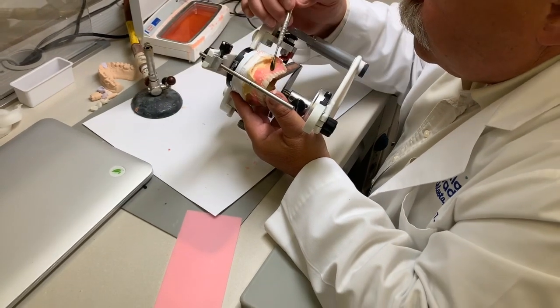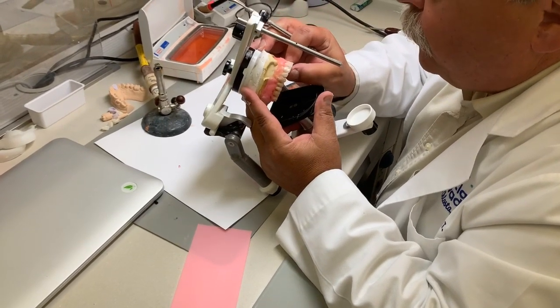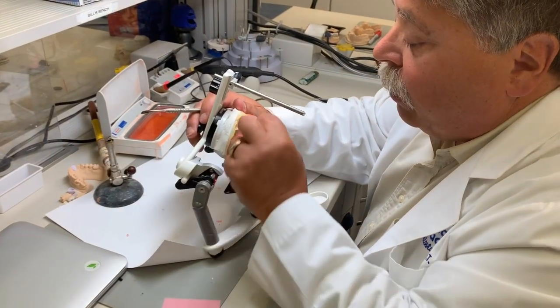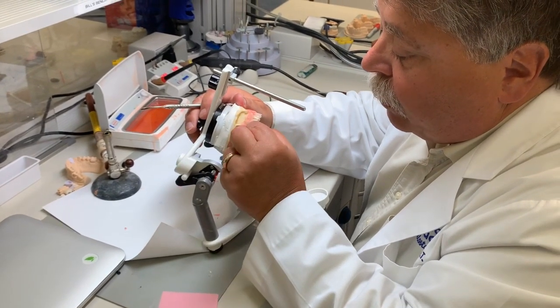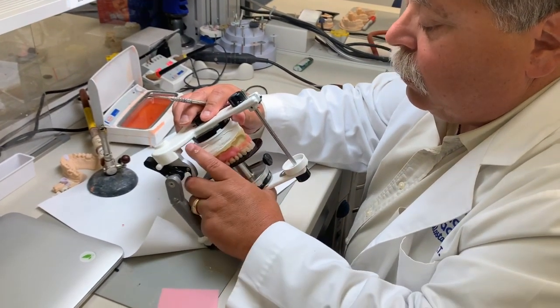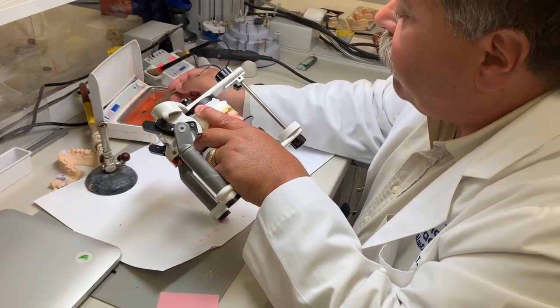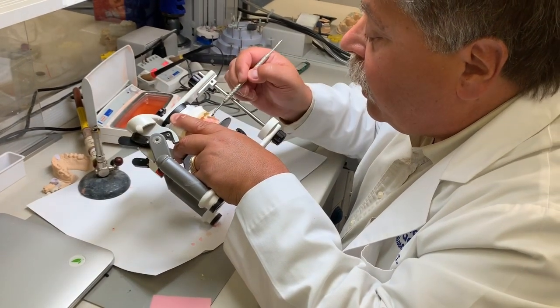Like you said before, it's very important to pay attention to the little details. The little details. Because once they're in the acrylic, you can't just change them around. At this point, it's in soft wax, so we can easily just pull out one tooth and make a change, rotate it a little bit, turn it, put it back in, and make whatever changes are needed. Once we get into the processing point where we remove all the wax and replace it with acrylic, hard acrylic, it's a different story.